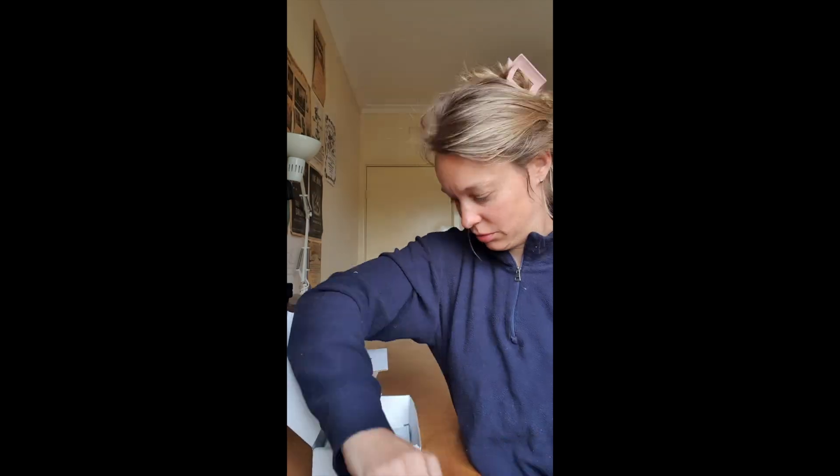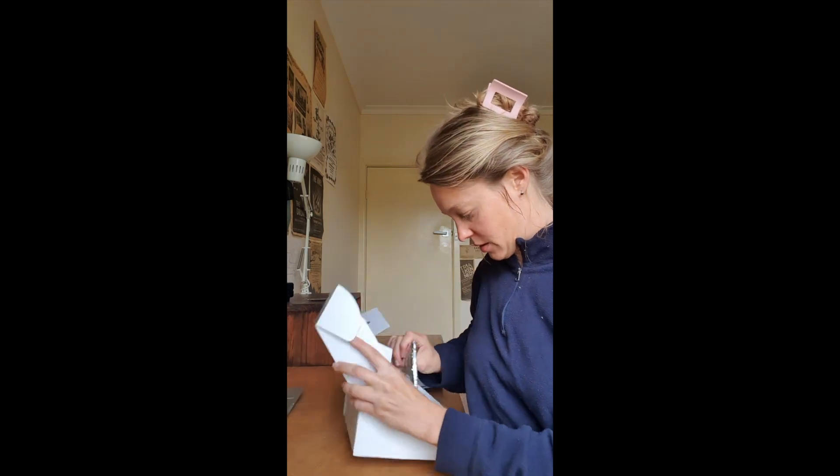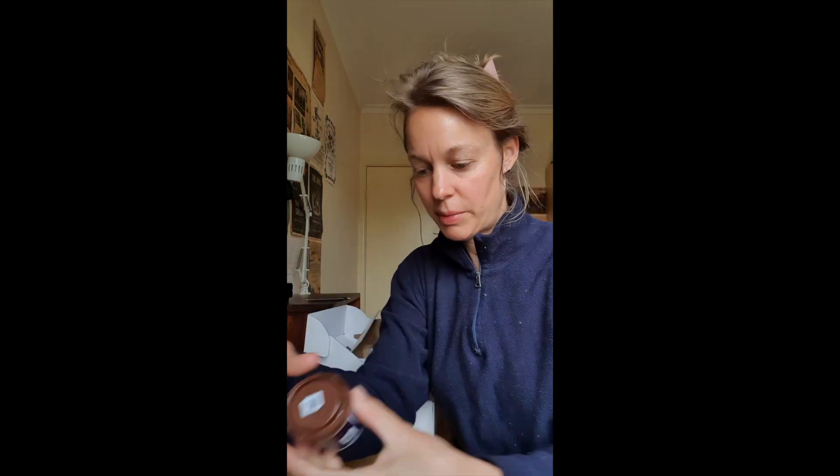You've also got two pouches — a small one and a large one. You've got your pre-paid envelope, or parcel. And finally, there's a thermal pouch, which you'll use with the ice pack later.